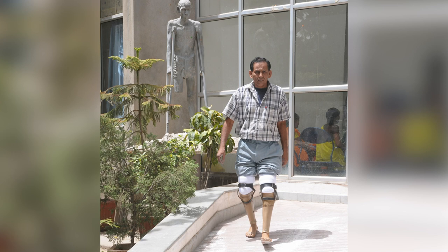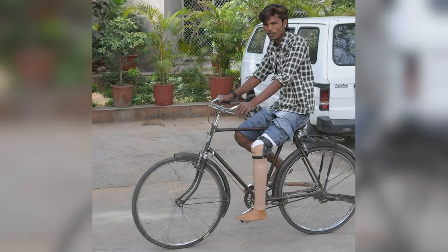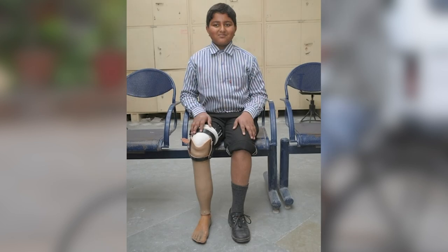For today's class, we will consider the Jaipur Foot as our case study. The Jaipur Foot is a prosthesis. Prostheses are different from ones which are put inside the body — these are artificial supports for the body from external aspects when there is an amputation or some deformity in the legs or hands.